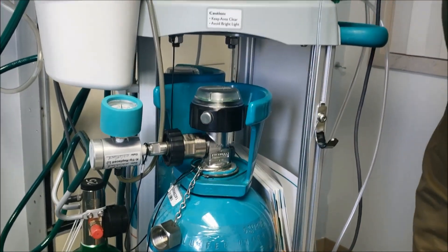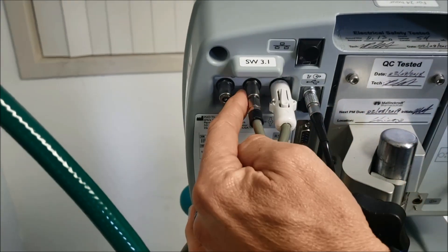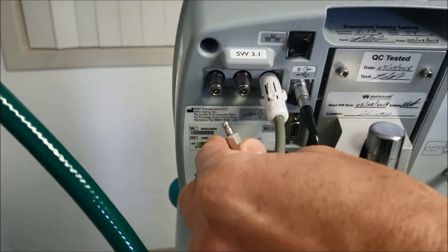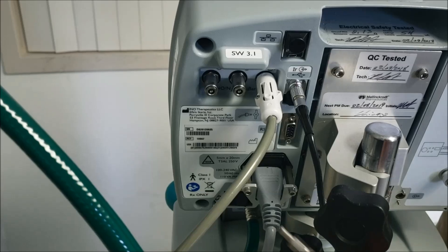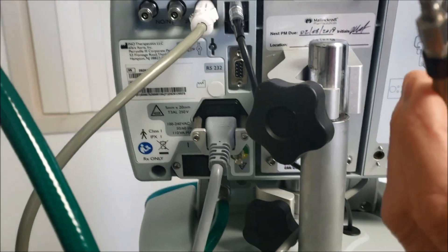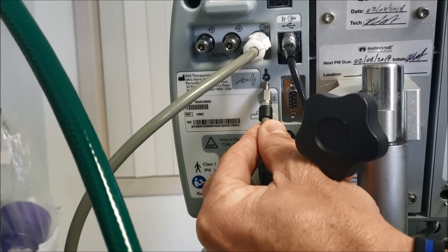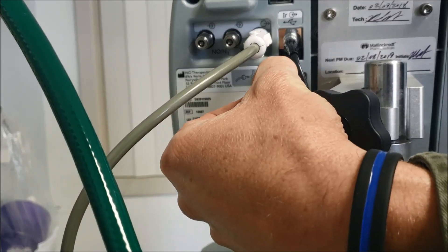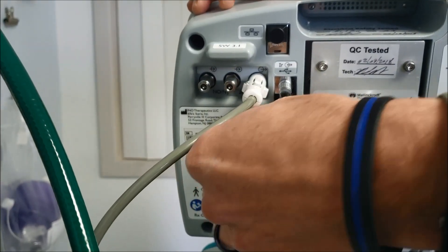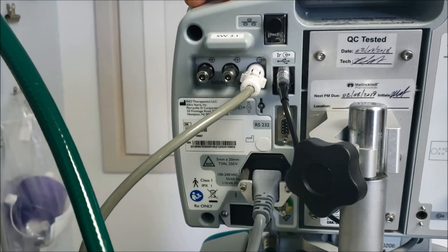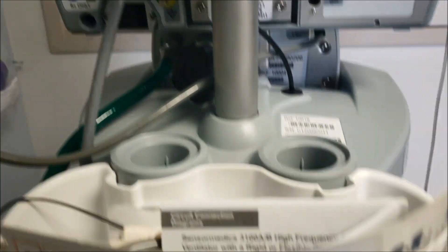We take this hose off. So we push in this metal part right here, and it spring loads the gray hose off. You want to relieve the pressure out of the gray hose, and they provide a little metal bead right here, kind of like a little eyelet, and you just put it on there. It brings the pressure out of the hose, relieving the pressure of the hose, and that would conclude the test.